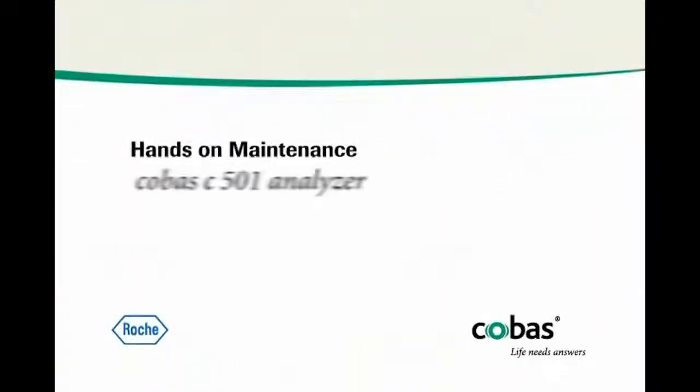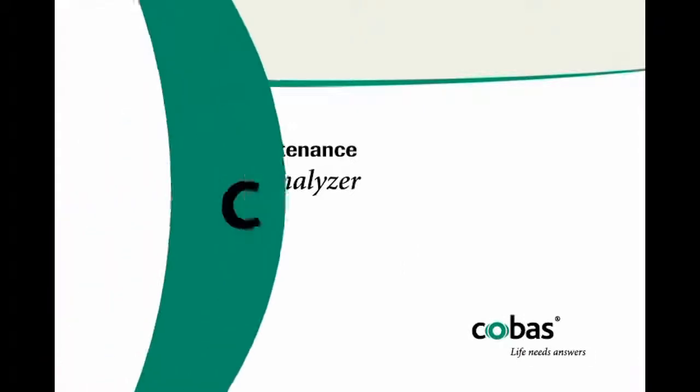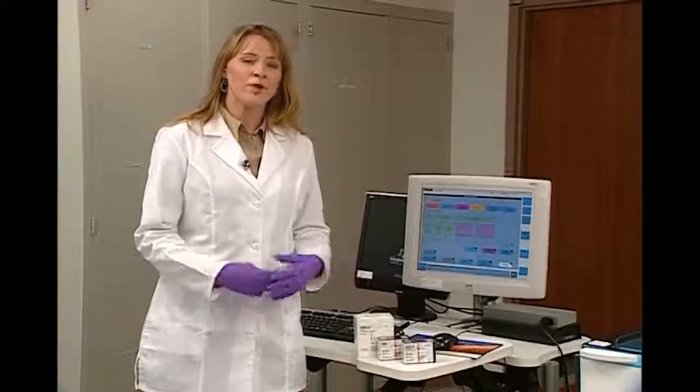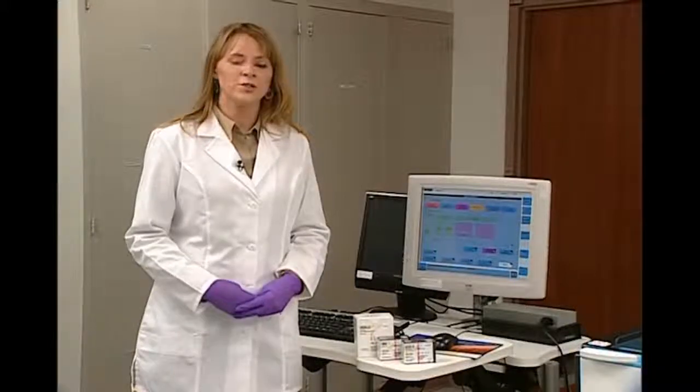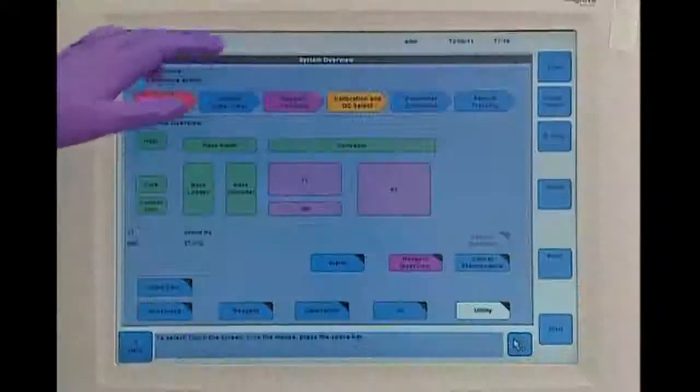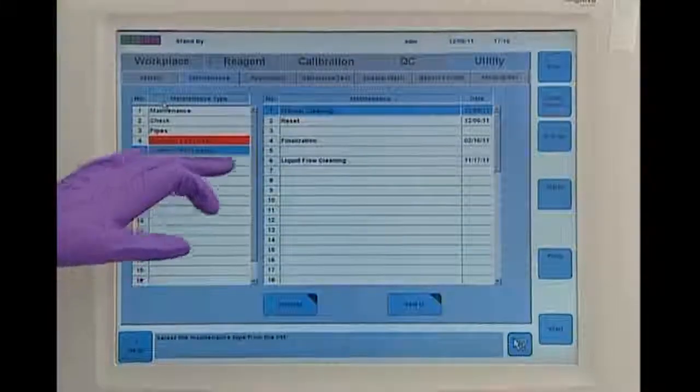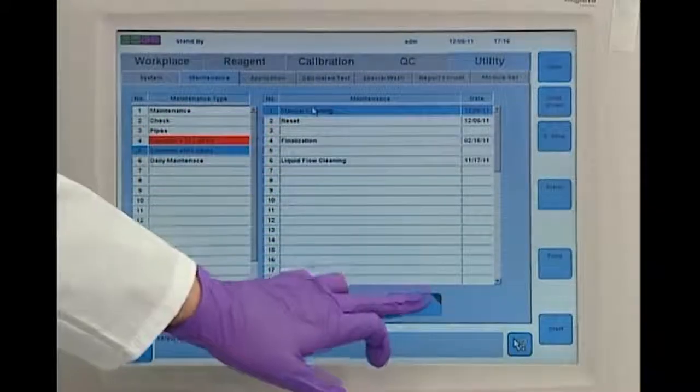I have my reagent load list, so I'm now going to go and gather the reagents that need to be placed on the instrument for the day. As you can see, I've gathered my reagents. But before I place them on the instrument, I'm going to do the hands-on maintenance. I'm going to use the software to release the components by putting it into a manual cleaning.